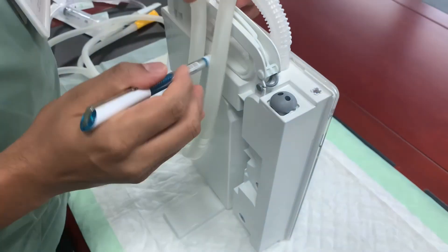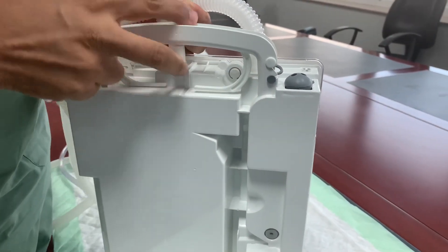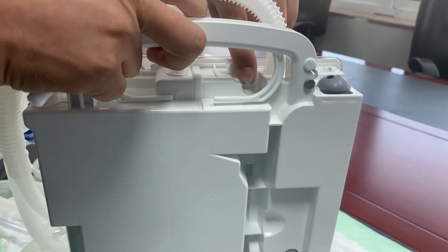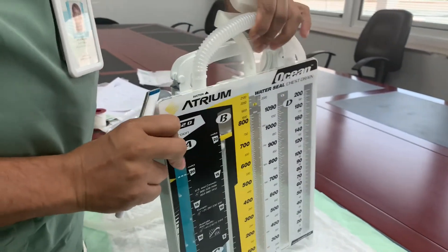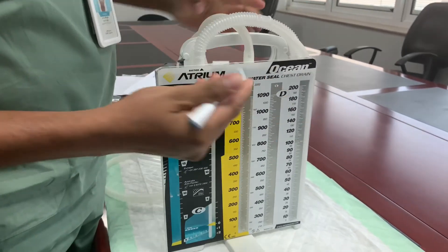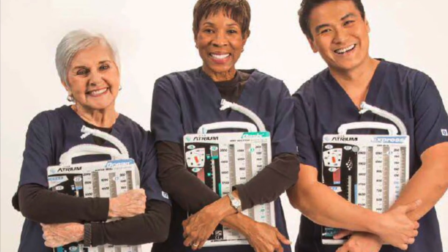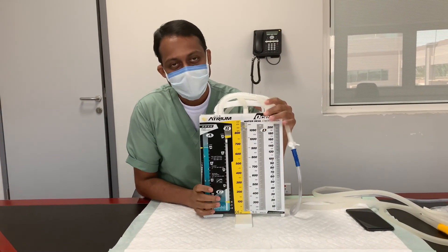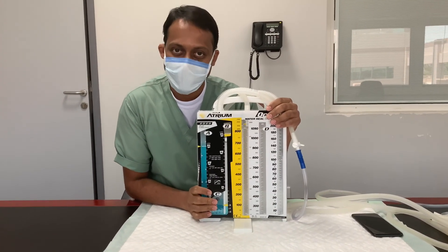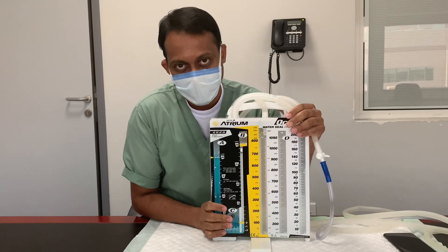Also remember not to press the manual high negativity control valve unnecessarily, especially in gravity drainage patients, as this can cause complications — that is why it is hidden at the back. Dear friends, this system is easy to understand once you study it. Watch the video until you fully understand it, and provide safe and quality care to the patient with the chest drain unit. Thank you.